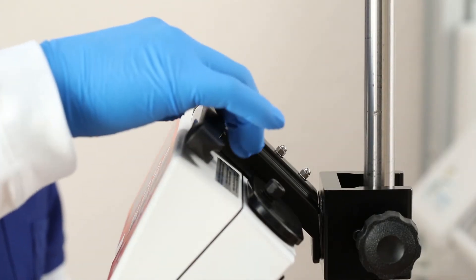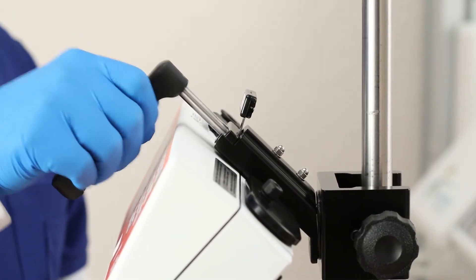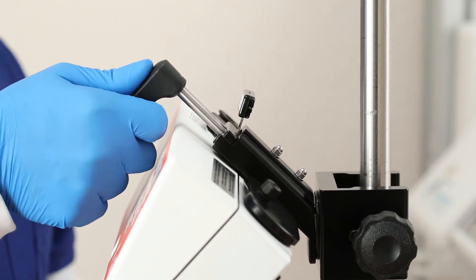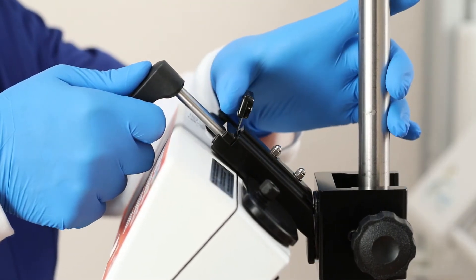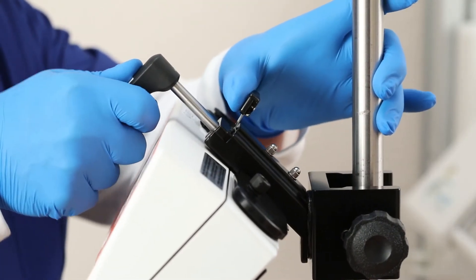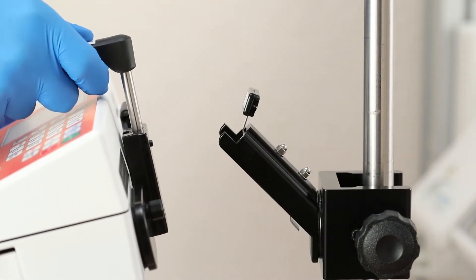Finally, to remove the pump, move the handle to the carry position. The pump can easily be removed from the pole clamp. Ensure you are using the handle and then gently push the release button while pulling up on the handle.